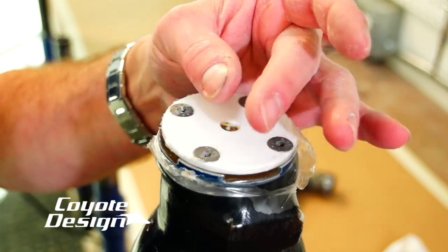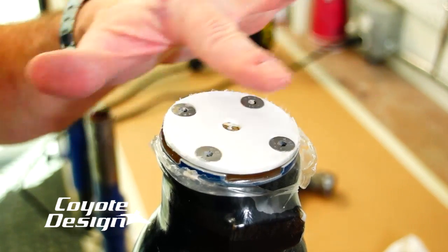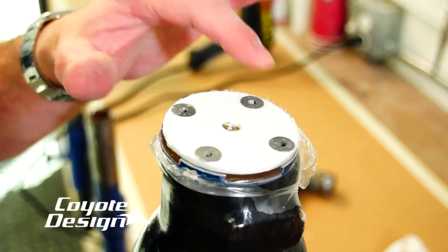If it's on there real thick and you have lots of layers of nylons over the top of your lamination plate, you're going to want to take it to a grinder and grind it away so you can get to the top of your screws.